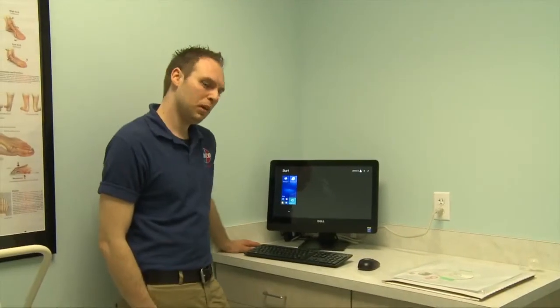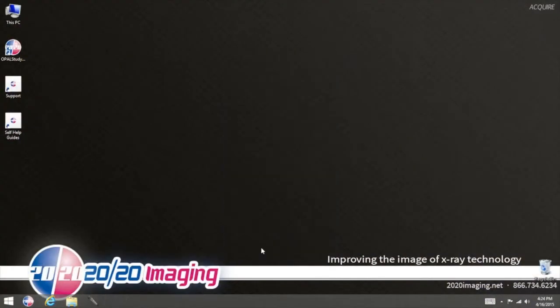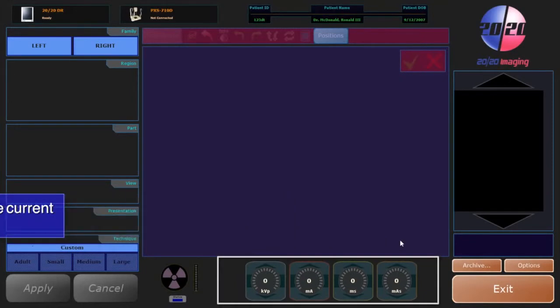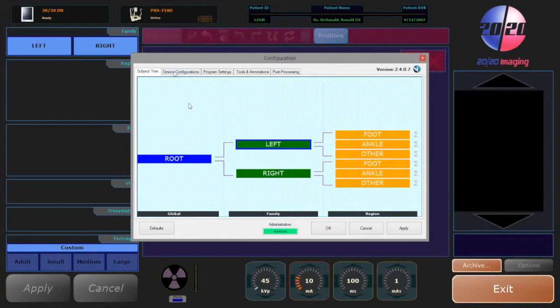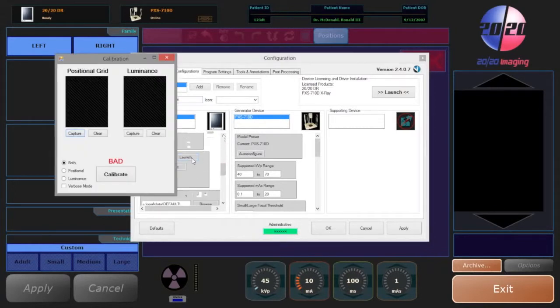We're now ready to perform calibration. Simply right-click on the start menu. Select options from the right-hand side. Select device configurations. Select default. Go ahead and scroll down to the calibration option and click on launch under calibration utility.